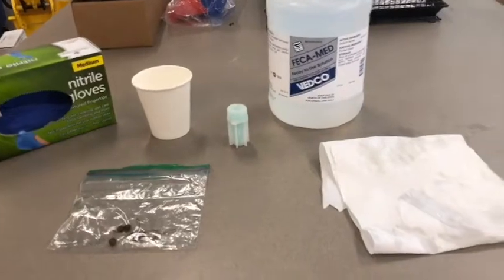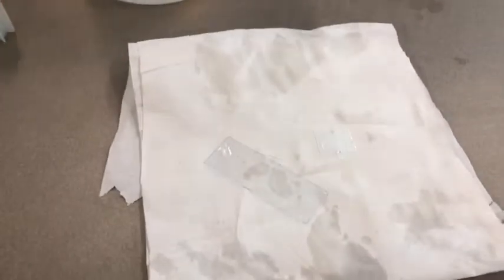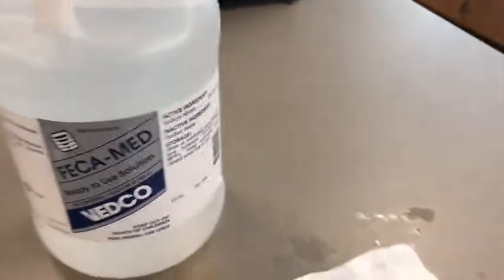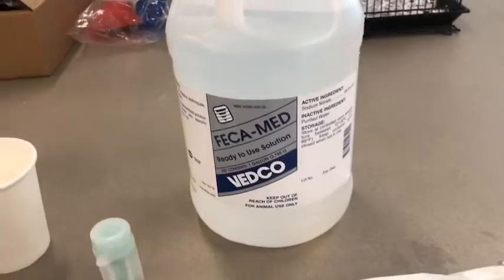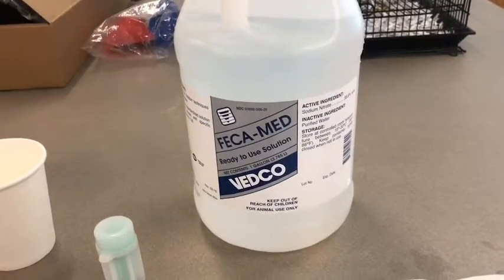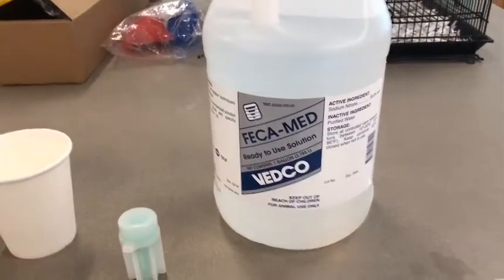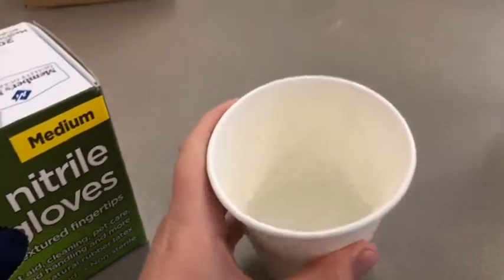So I've pulled together my supplies. Fecal tests can be quite simple. You'll need a slide and cover slip so that you can look at the sample under the microscope to try and identify the parasite eggs. And you'll need some fecal solution. I have chosen a pre-made, ready-to-use solution. However, many solutions simply use a type of sugar mixture. You can find recipes online to make your own fecal solution. I've pulled some aside so it's a little bit easier to work with.